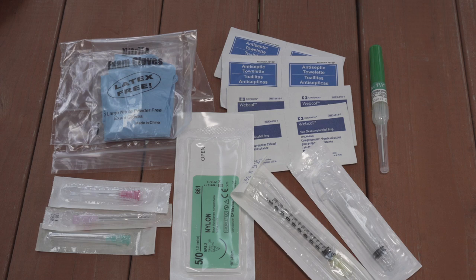You can use this kit for immunizations, injections, IVs, blood samples, anesthetics, or sutures. The idea behind it is that it helps prevent disease transmission whenever you may come into a situation where someone's going to use unsterilized tools on you. Carry this kit with you when you're heading to underdeveloped locations and have that peace of mind.